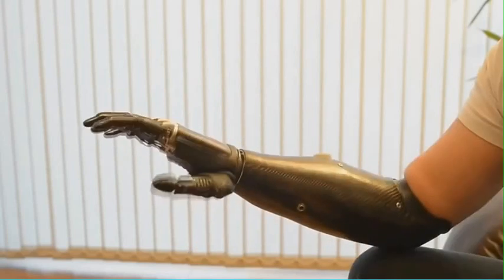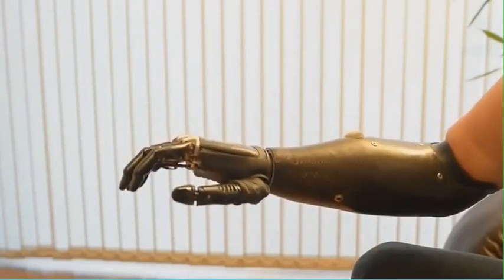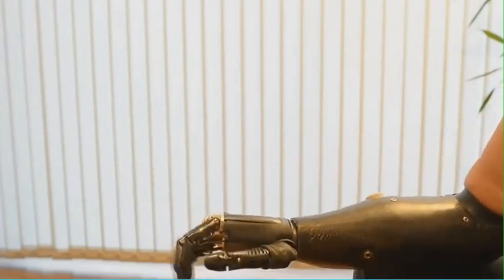Having a relaxed grip, so that when you walk down the street it just looks like a normal hand. You can close it a bit further if you want to.